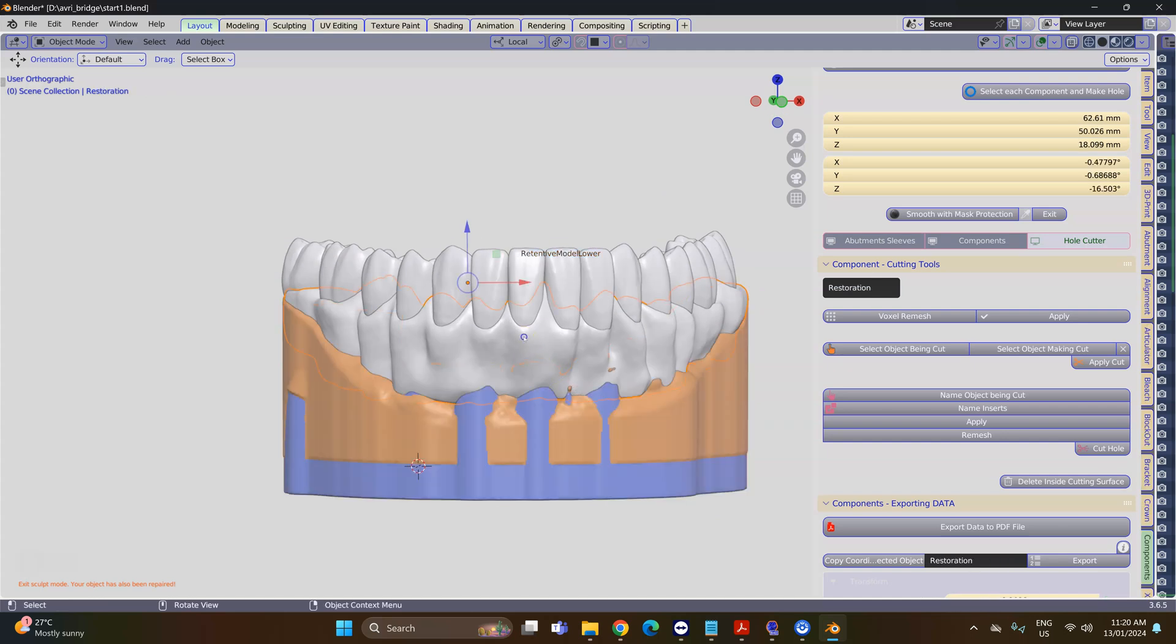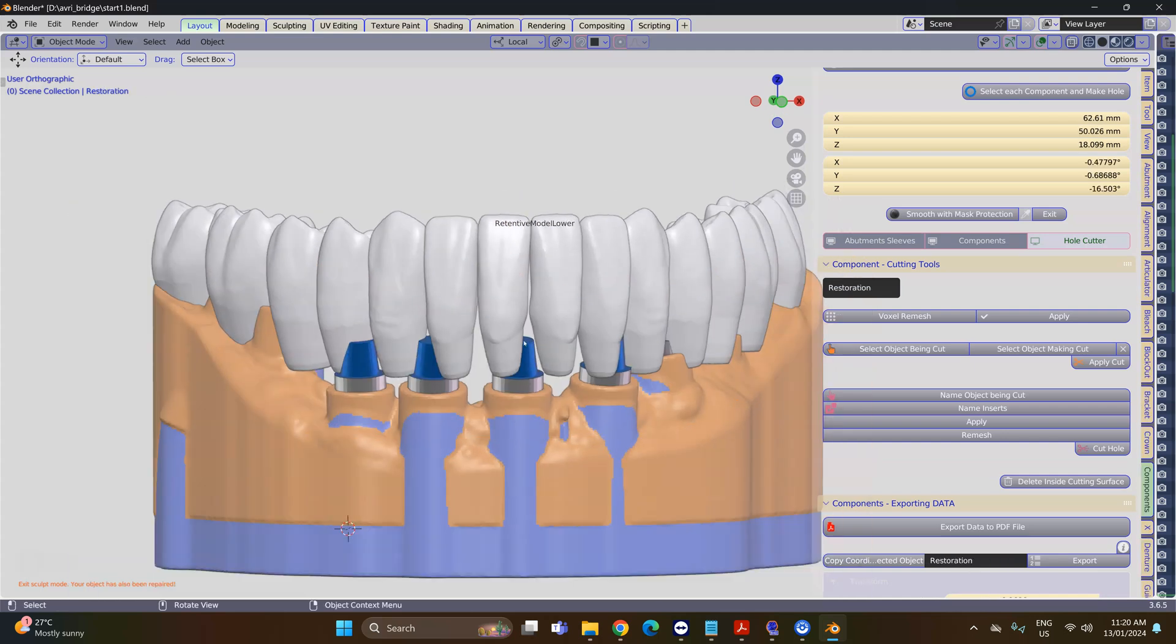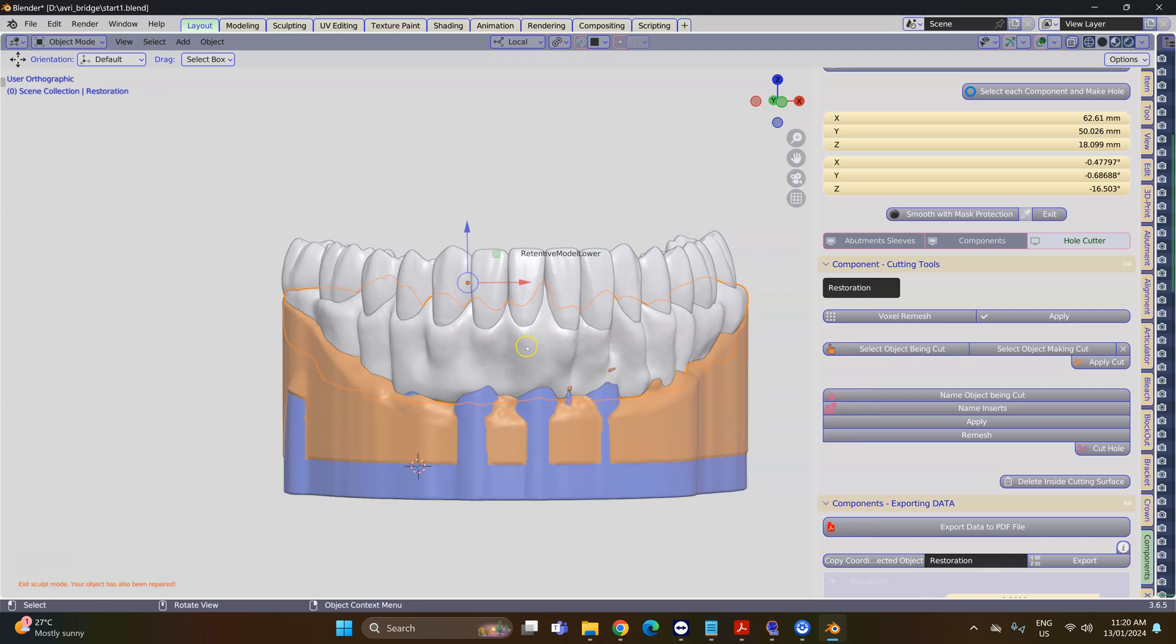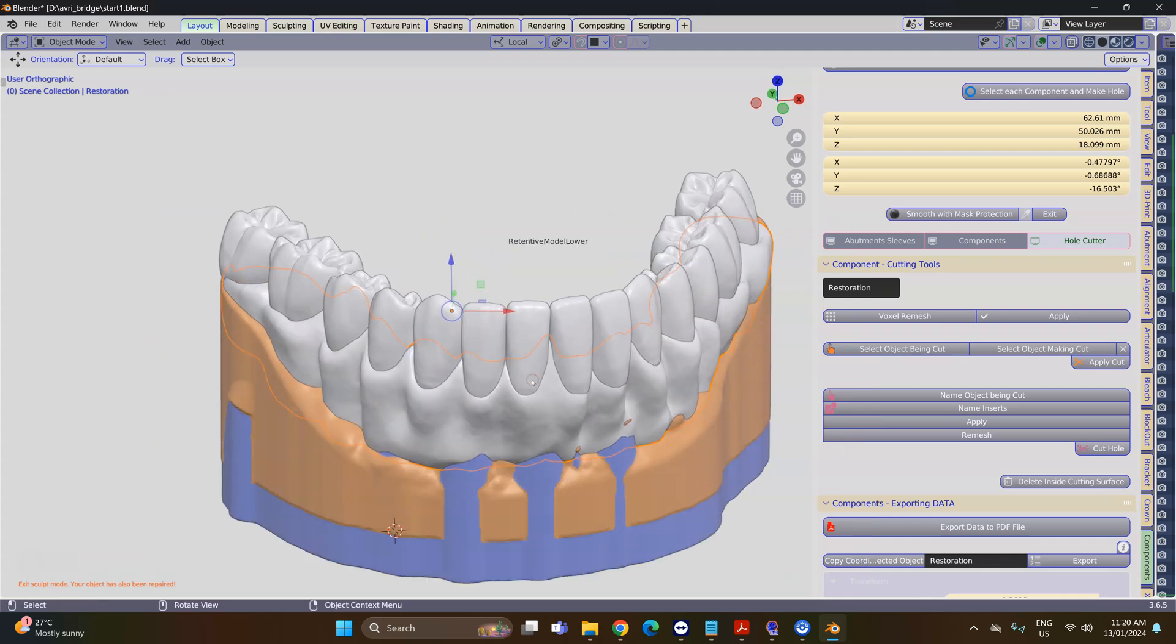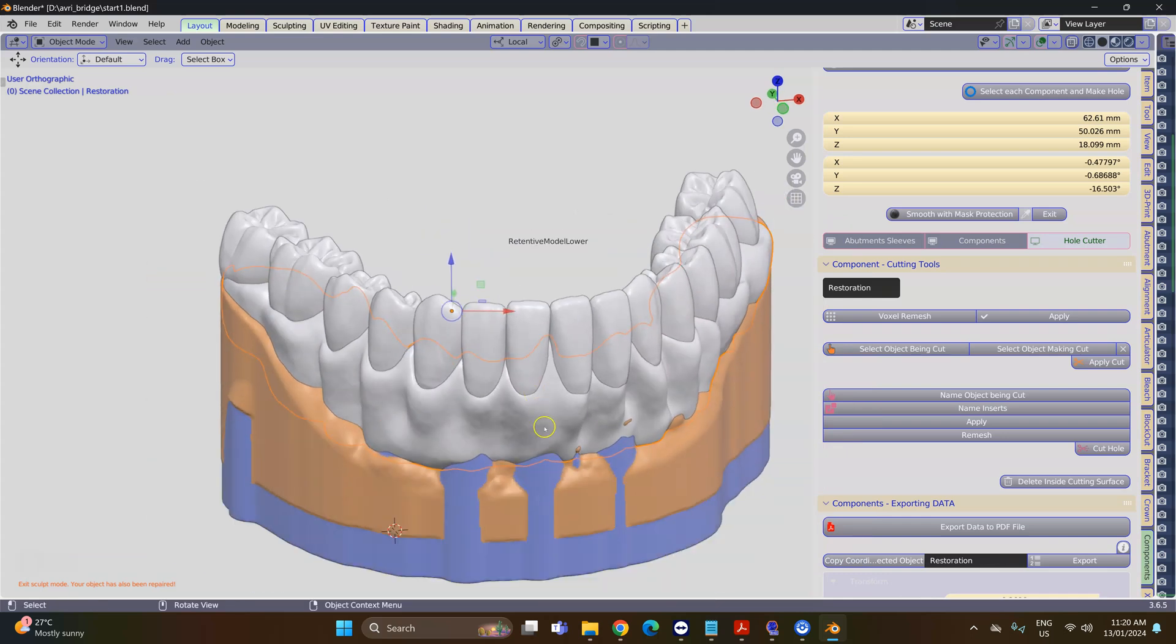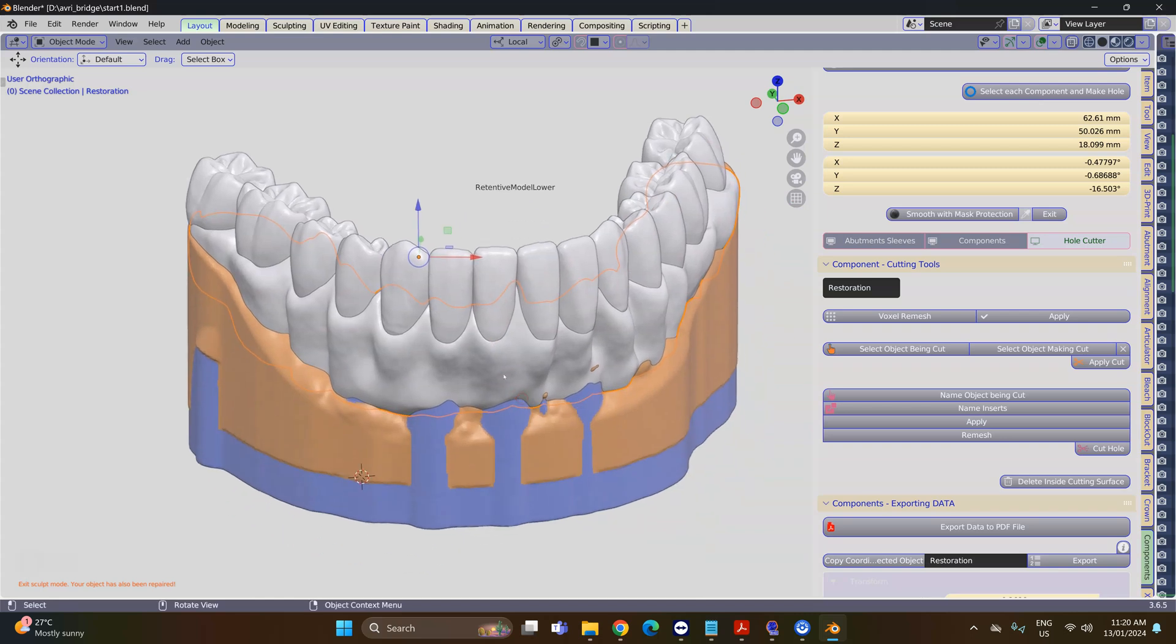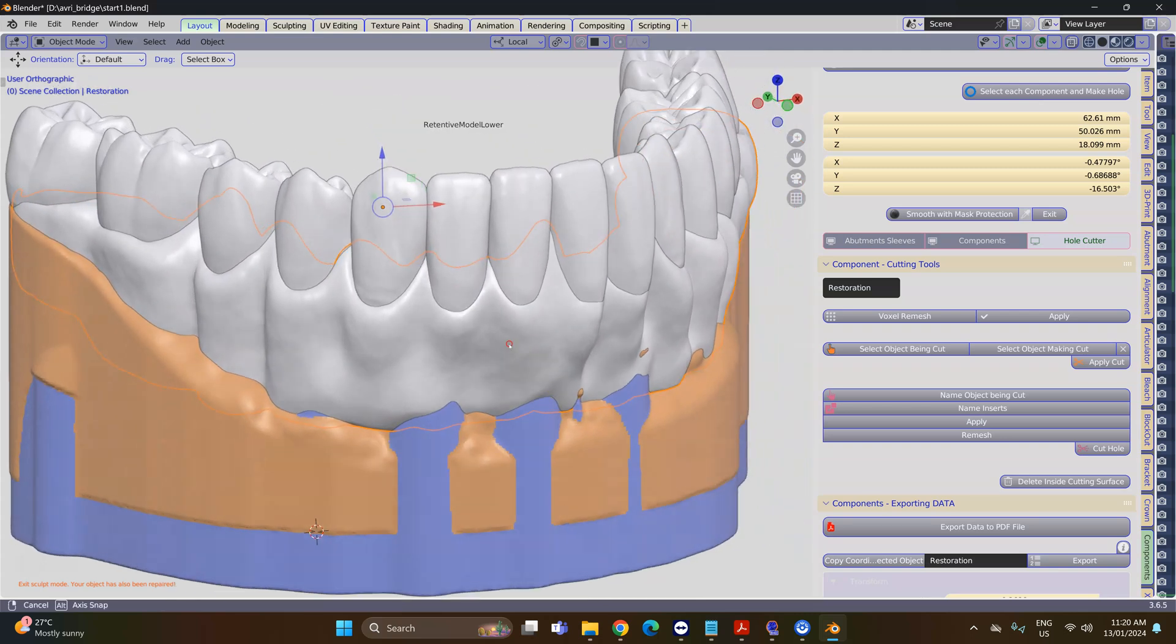At this stage, the tissue and gum protrude through the model and the teeth protrude through the gum. These have basically just been shifted around up to this stage. Now there's quite a lot to do in this video.